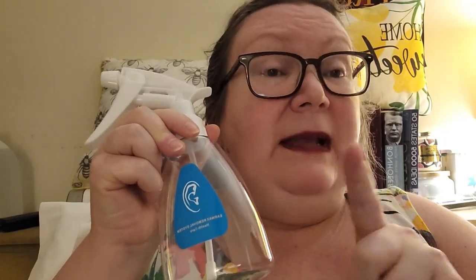What was the cost of this? I think it was $12, if I'm not mistaken, which to me that's not a bad price. It really isn't because I compared — there were other ones that were like over 20 bucks if you get them somewhere else. And they come with a bottle and everything. So I'm really excited to try this. I'm not ready to do it right now — I'm just doing an introduction to the product.